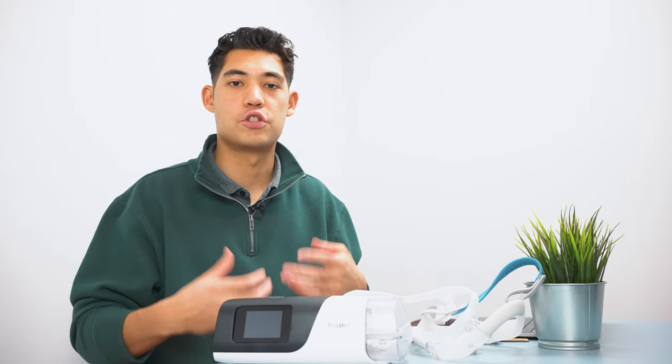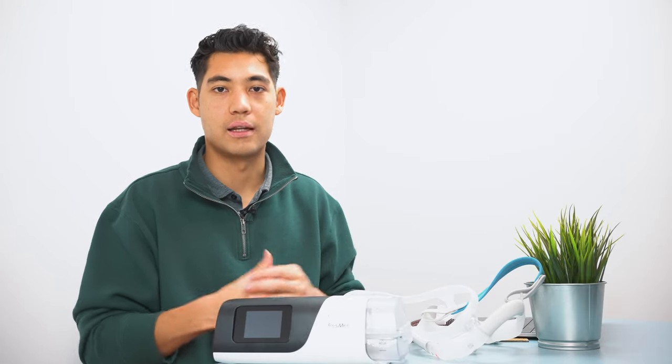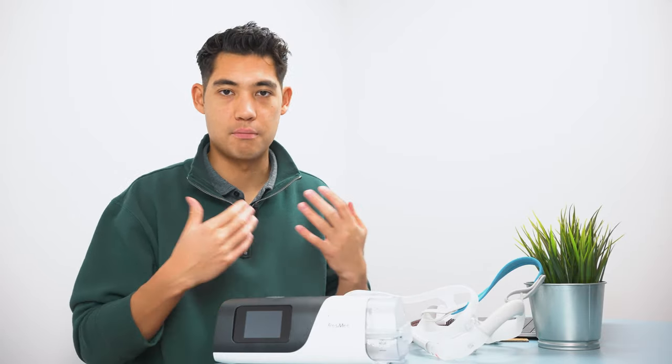But for the most part, chin straps are going to do a really good job at holding your mouth closed and allowing you to have proper mouth posture and not getting dry mouth. Okay, the last thing I want to talk about is mouth tape.